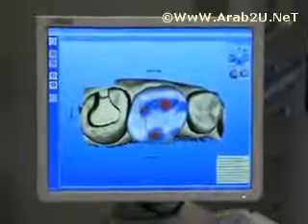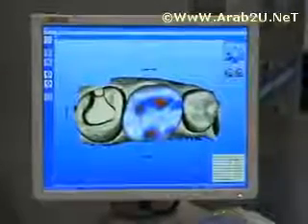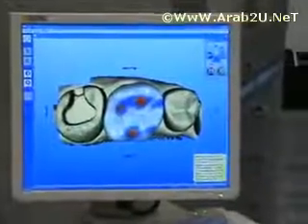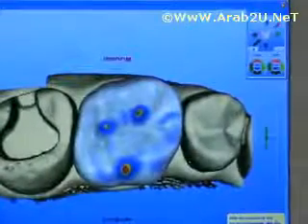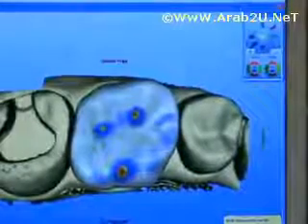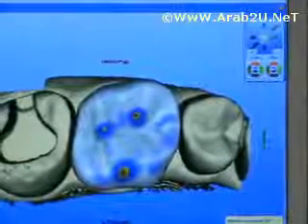I'm going to rotate the crown counterclockwise and position it slightly to the buccal to line it up better in the arch. I can take different views to make sure that it lines up well. Once satisfied with the overall position of the crown, I click my green arrow button and proceed to the next step.